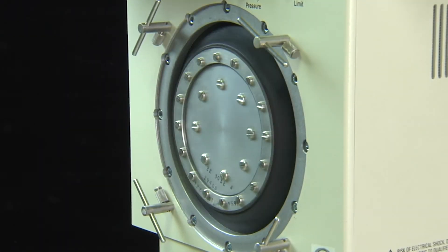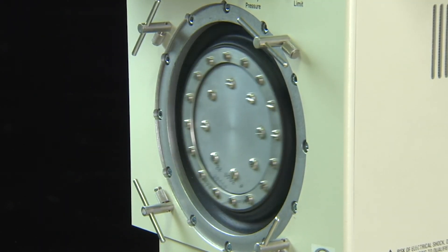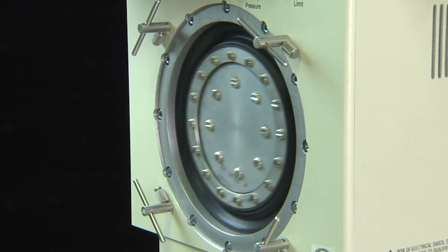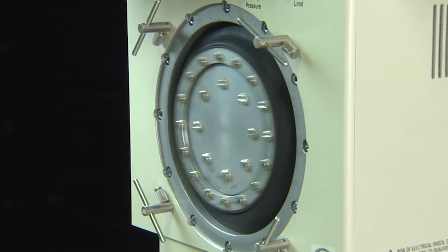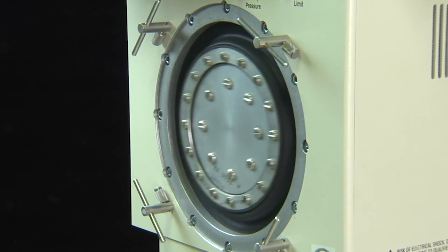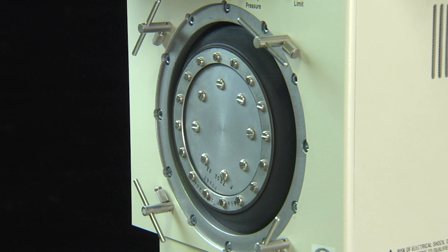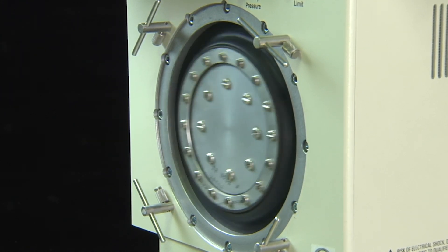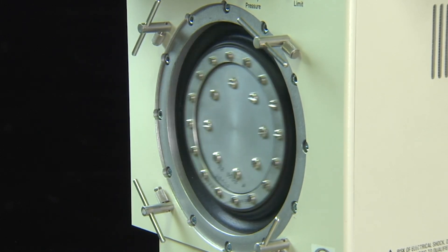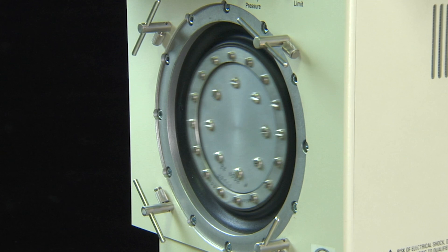An electronic control circuit driving a linear motor produces the oscillatory amplitude in much the same way as a permanent magnet speaker. When the square wave driver has a positive polarity, it drives the electrical coil and the attached piston forward in the direction of the patient, resulting in an inspiratory phase. When the polarity is negative, the electrical coil and the attached piston are driven in the opposite direction, resulting in an active expiratory phase.